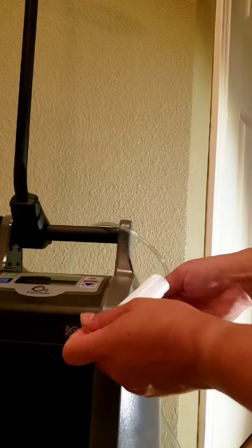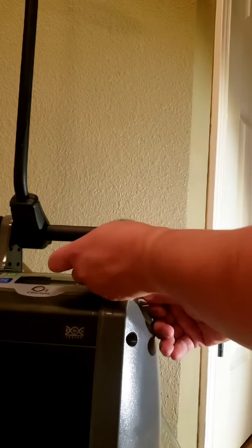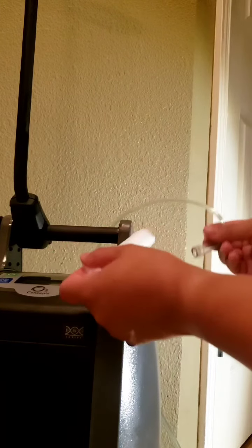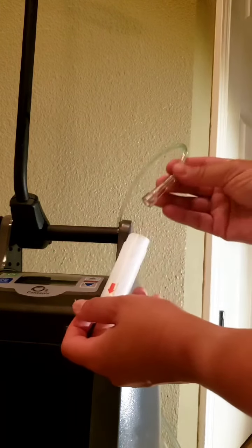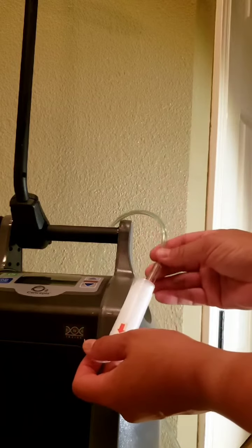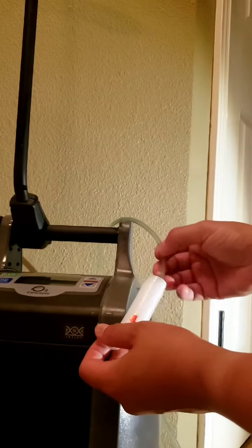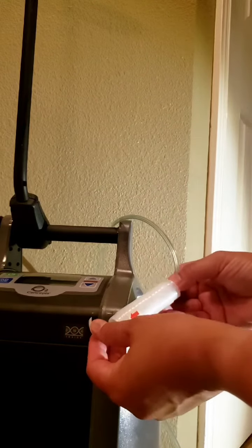You're going to remove the tubing, place it on the opposite end of the kink clear, and work it through.